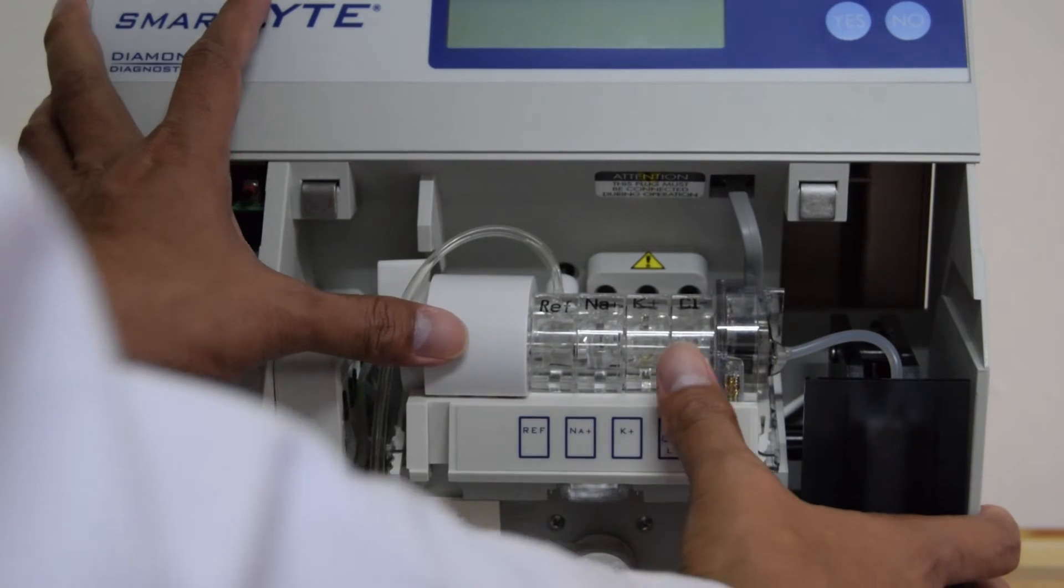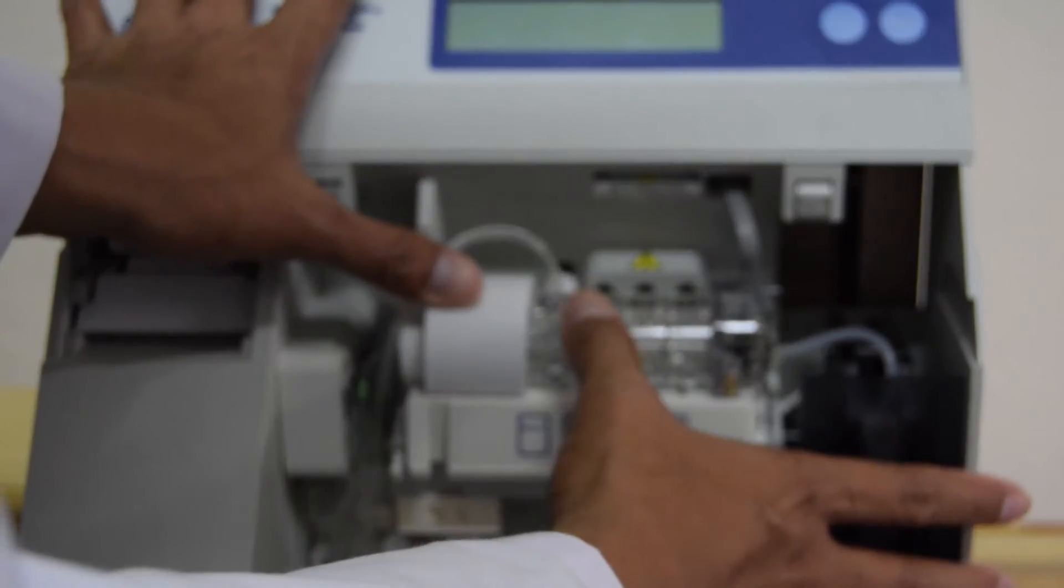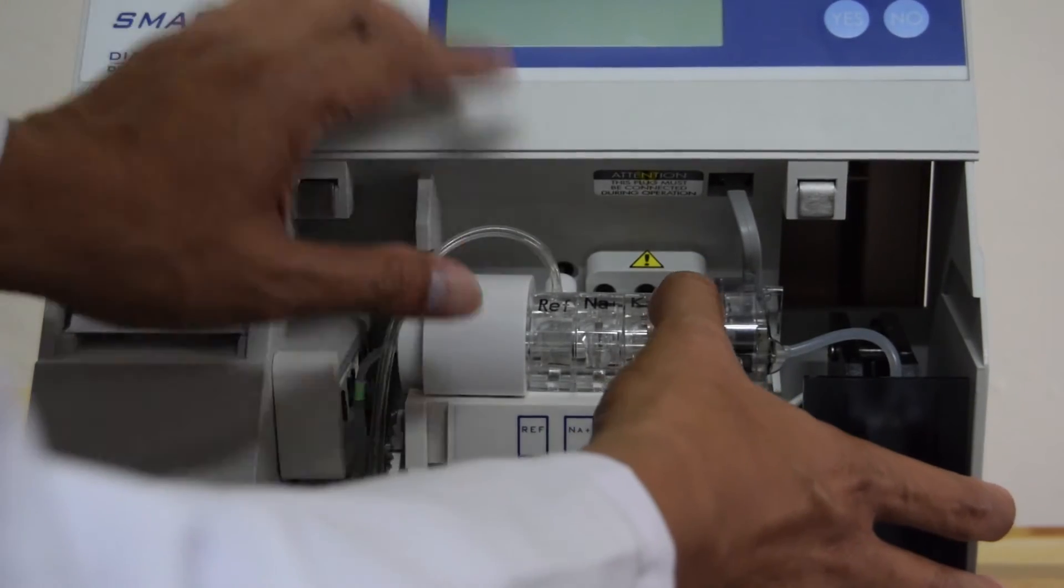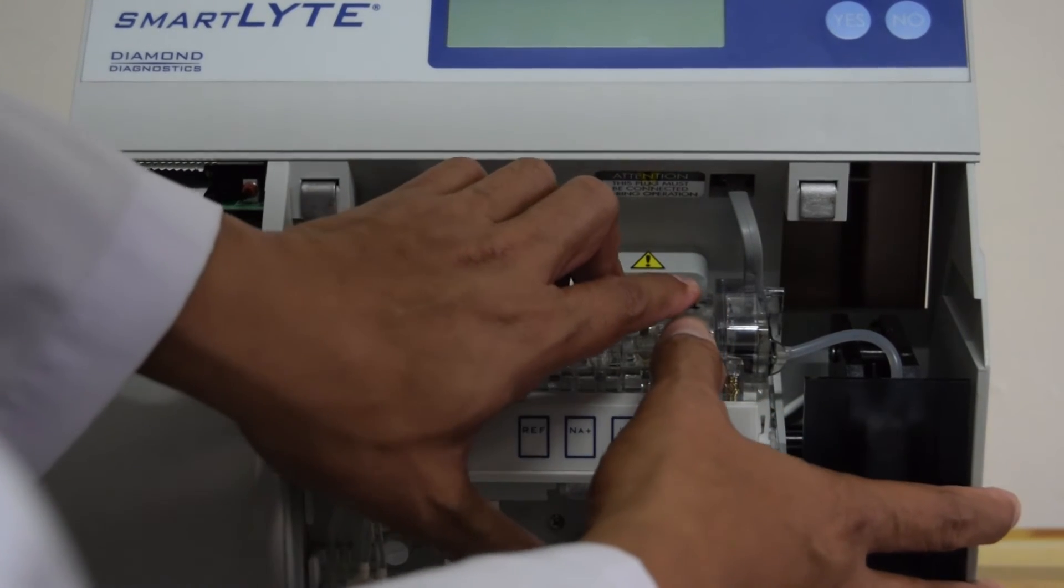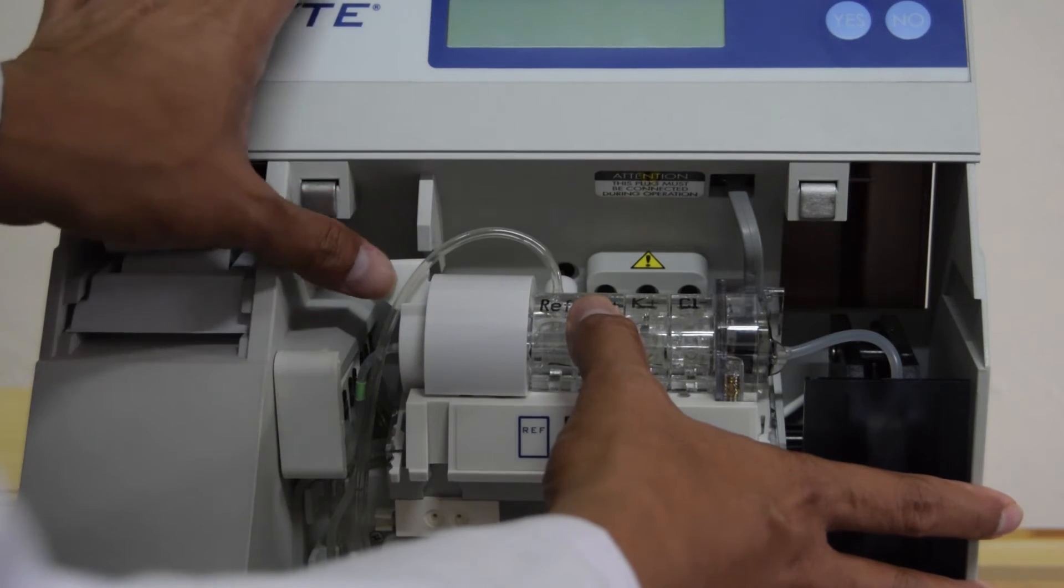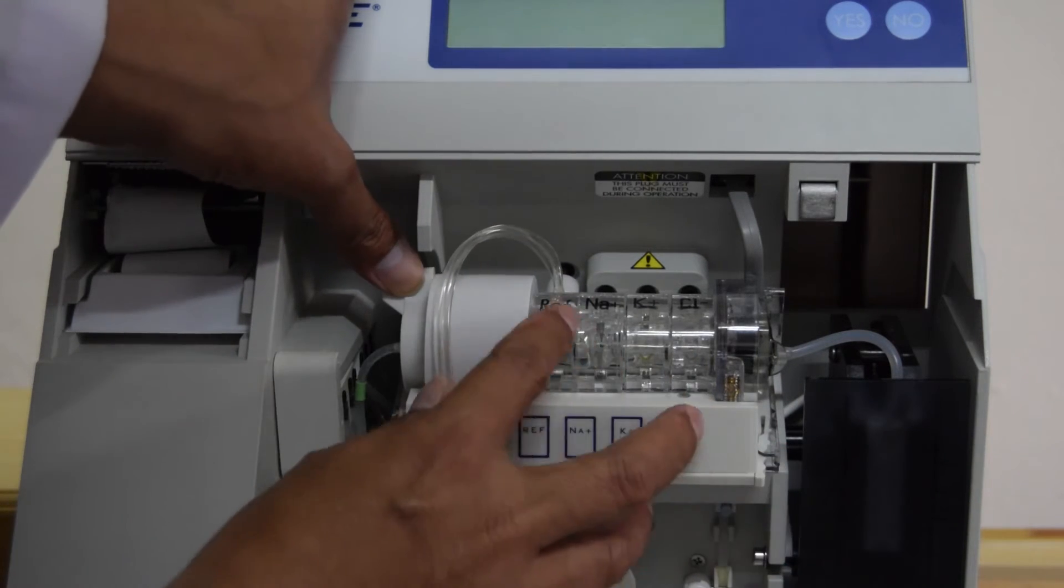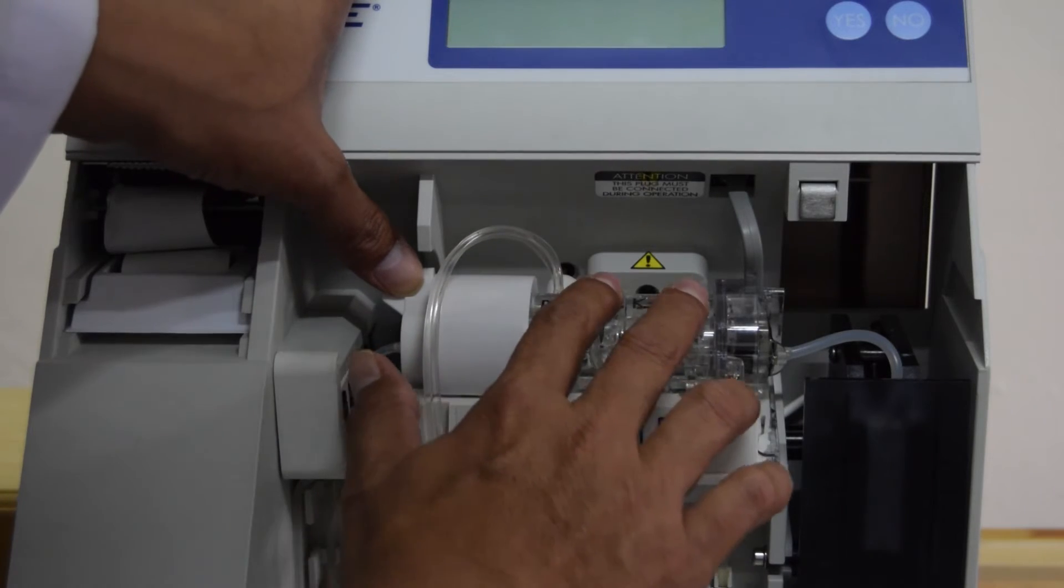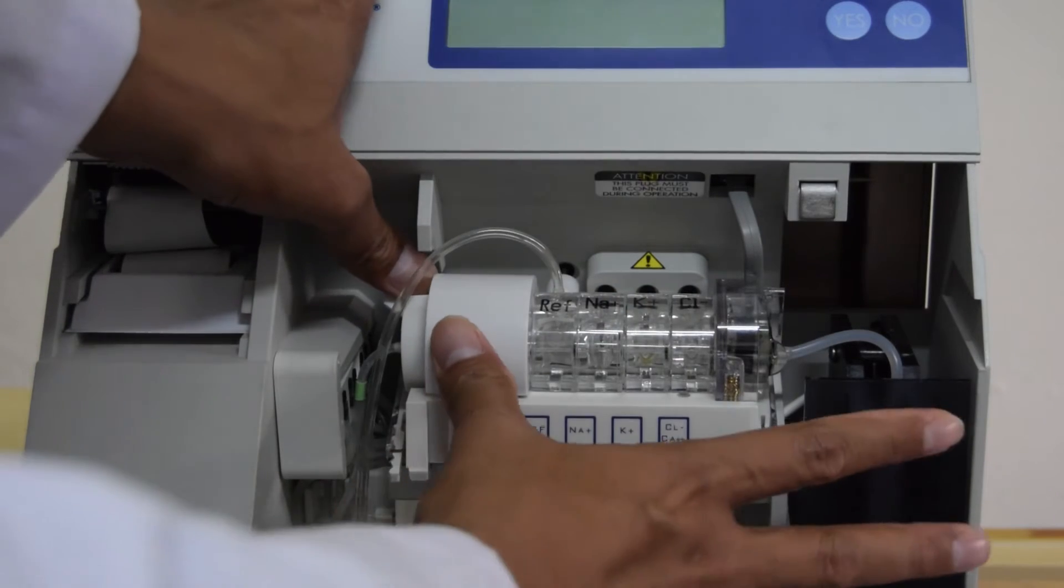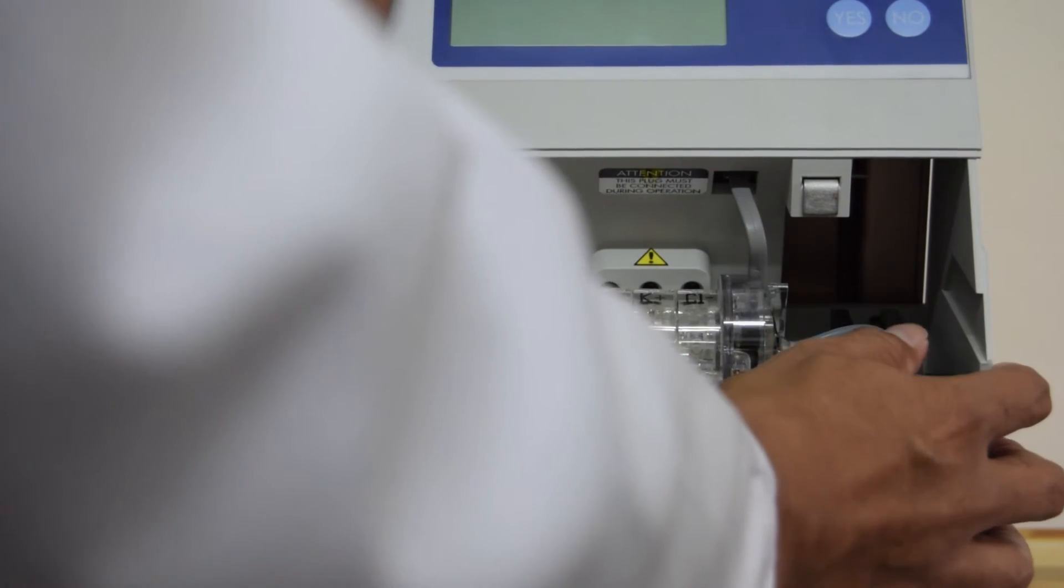Dengan melihat kondisi seperti ini. Ketika kita sudah memastikan bahwasannya posisi elektroda ini sudah pas pada lubangnya masing-masing, posisi sensor elektroda sudah pas, kita bisa mengencangkannya sampai maksimal. Maksimal. Sampai melewati batas atau batas maksimal dari pengencangan.